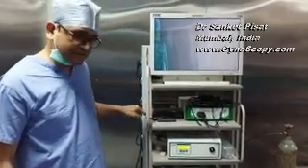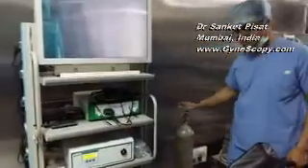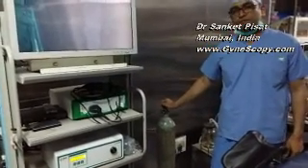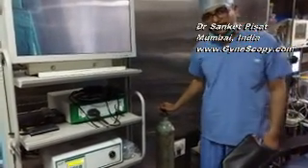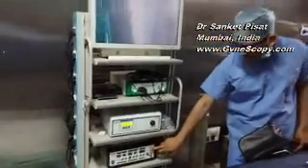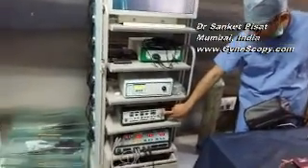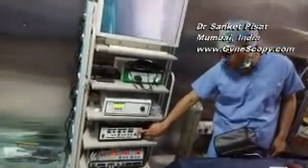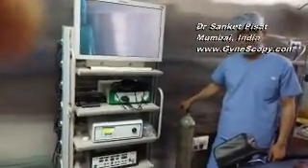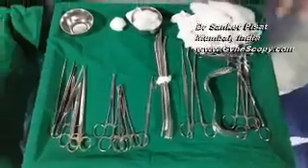not working. Lastly, but of course one of the most important things, please check that your CO2 cylinder is adequately full, because after starting surgery if you have to keep changing the cylinder, that is an unnecessary waste of time. Most of the newer CO2 machines are equipped with a sensor with which you will be able to find out whether the CO2 is adequate or not in quantity. If not, sometimes you have a dial which can be fixed on the CO2 cylinder itself to find out if the CO2 cylinder is empty.